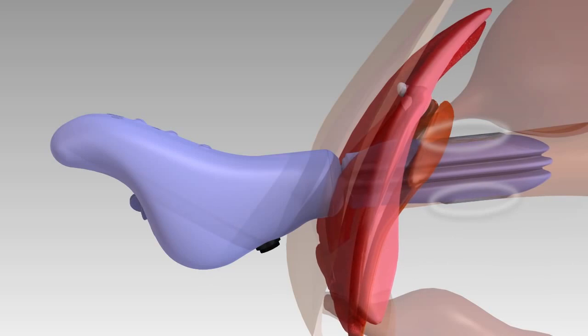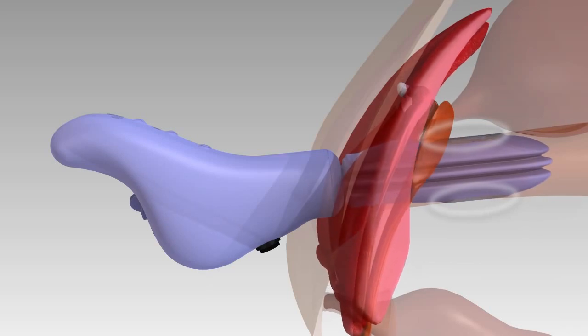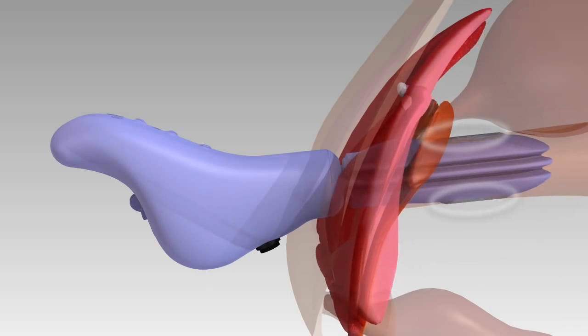relax and stimulate your muscles for five to ten minutes while holding Apex in place. Apex muscle stimulation contracts and strengthens the muscles of the pelvic floor, providing you the ability to maintain continence.